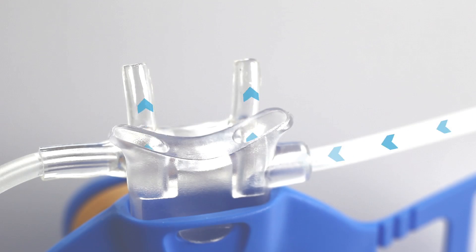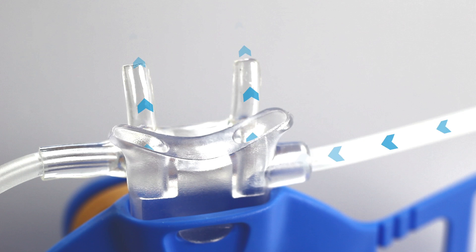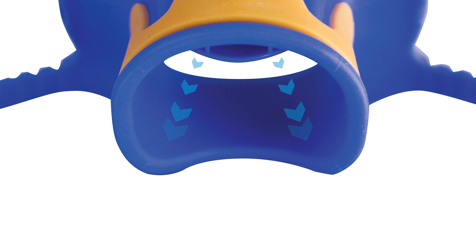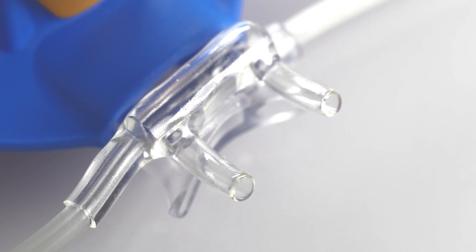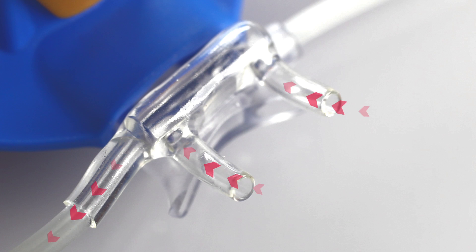Dual Guard's unique design delivers oxygen to the nose via ports at the base of the patient's nostrils. Oxygen is also delivered to the patient's mouth via integrated channels in the bite block.